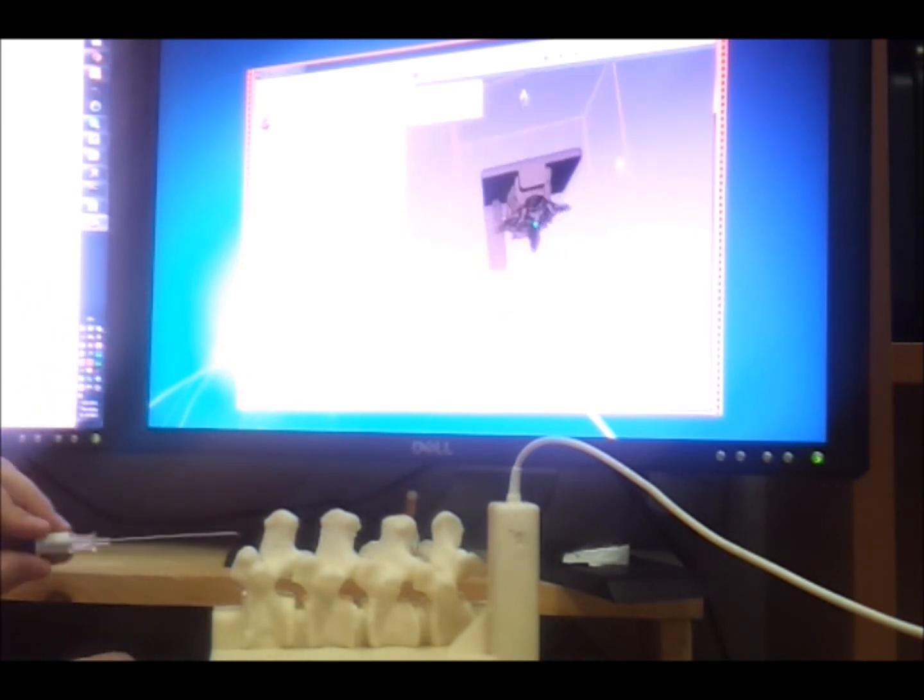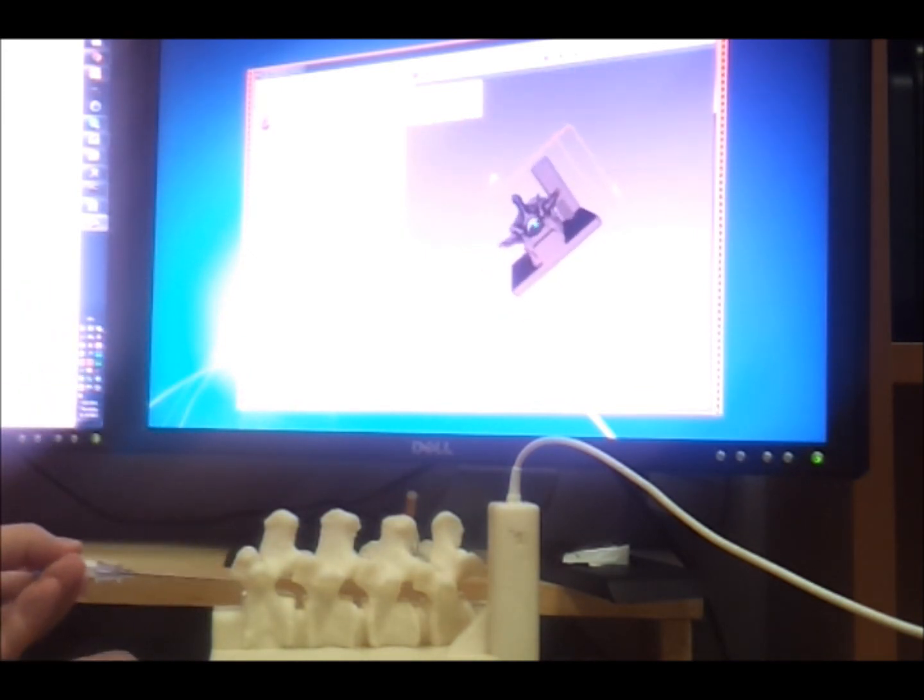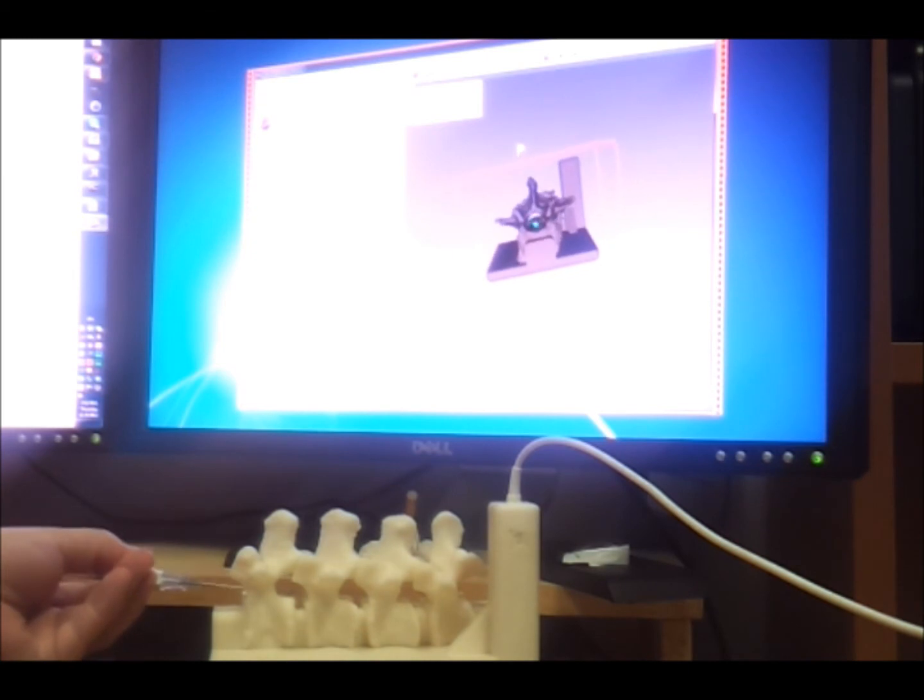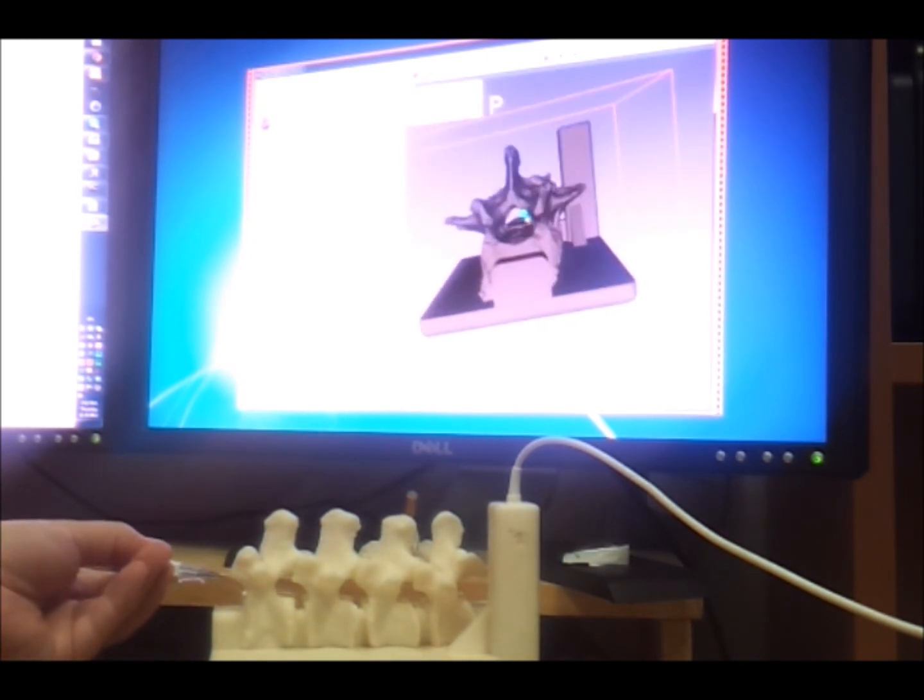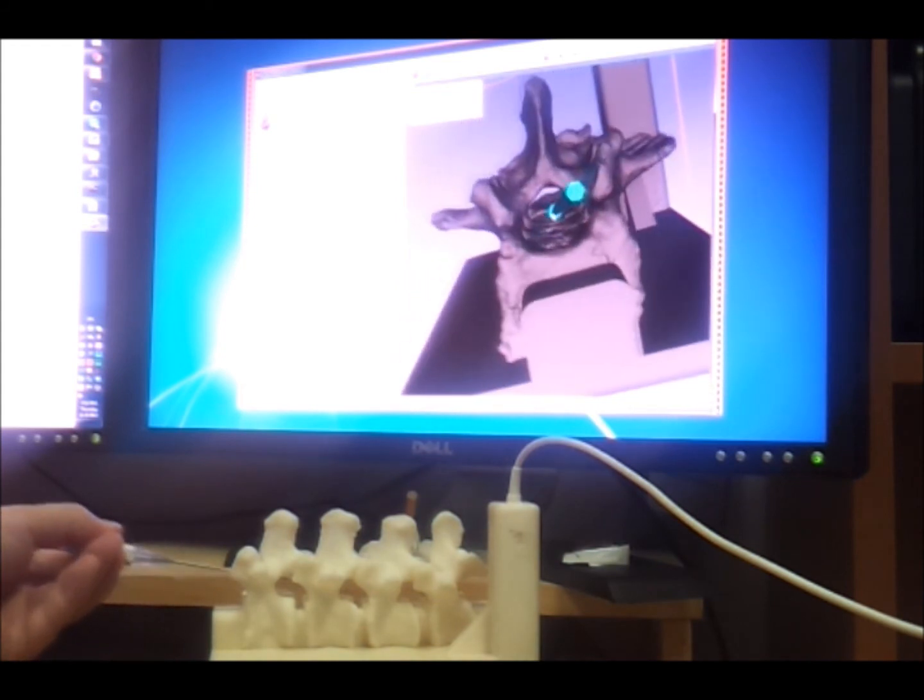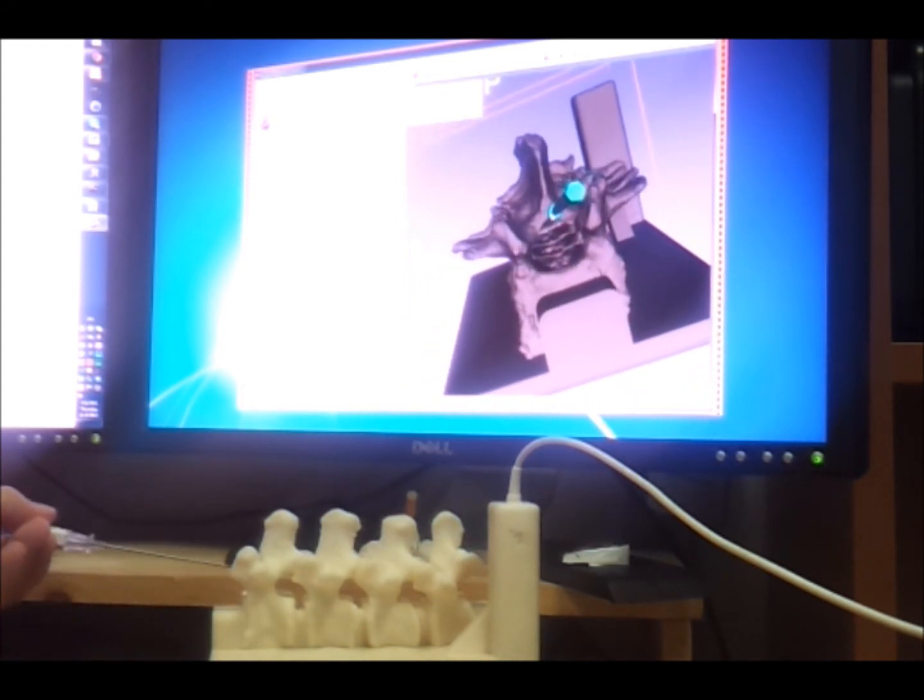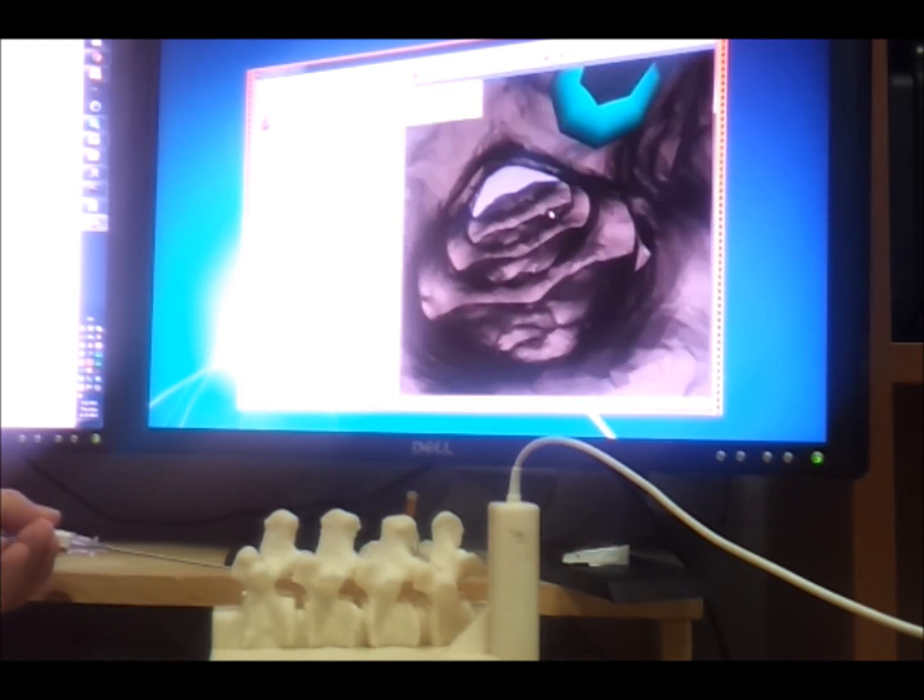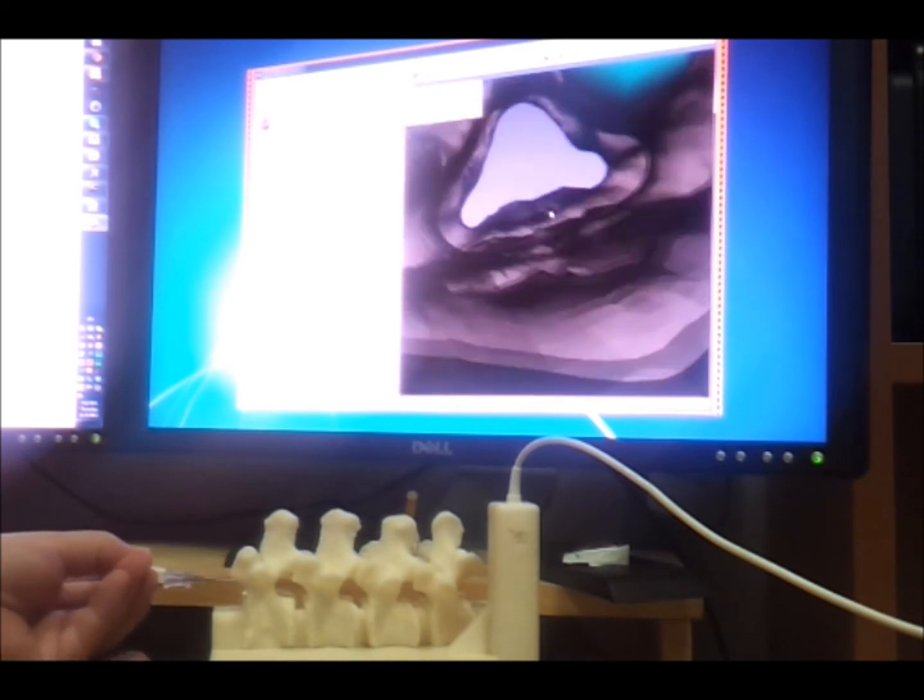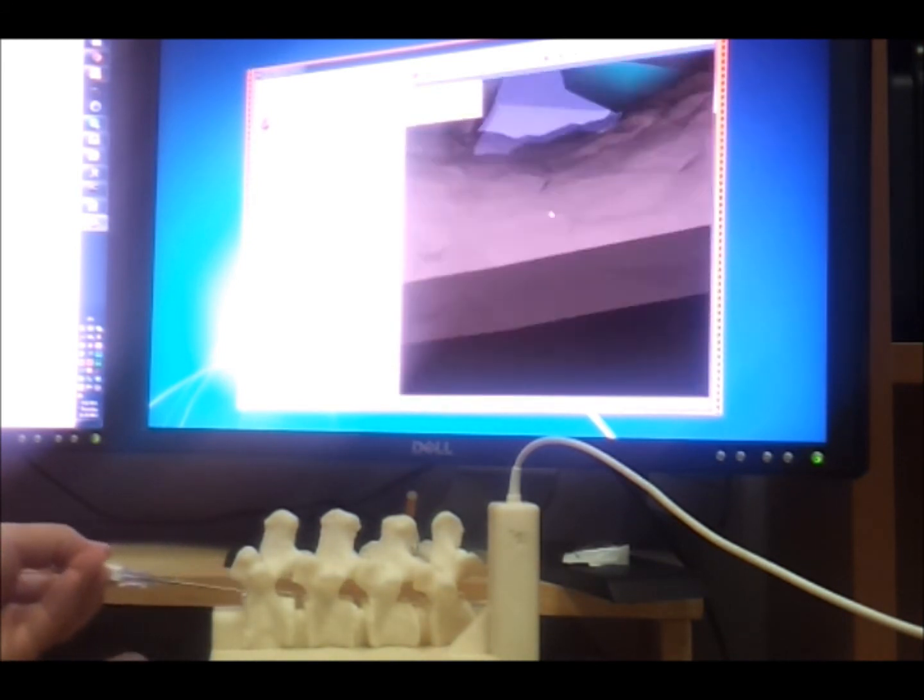At this point, the other part of the camera calibration is just the default 3D viewer. By scrolling with the mouse wheel, I can adjust the zoom, and I can also apply panning with the middle mouse button.